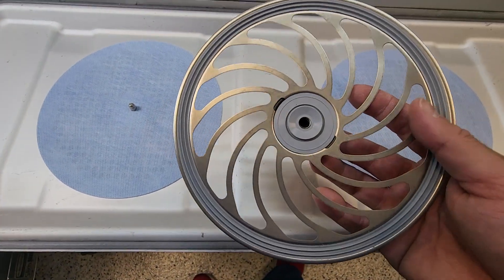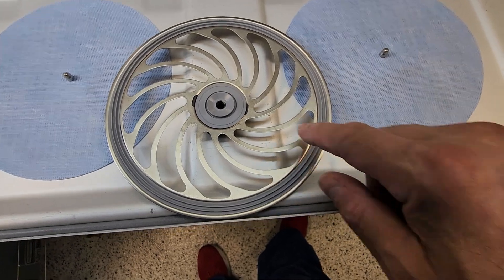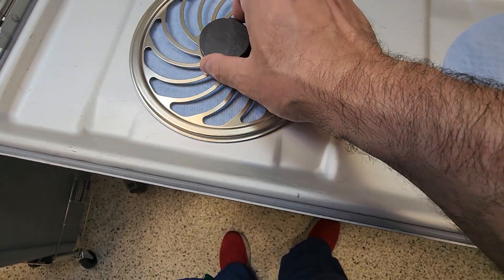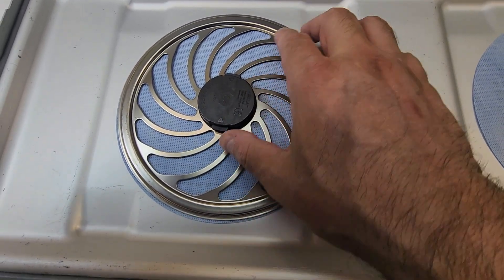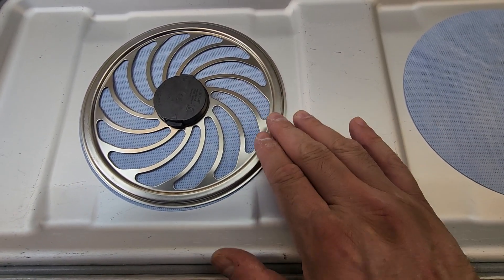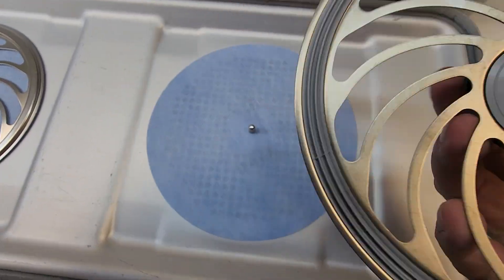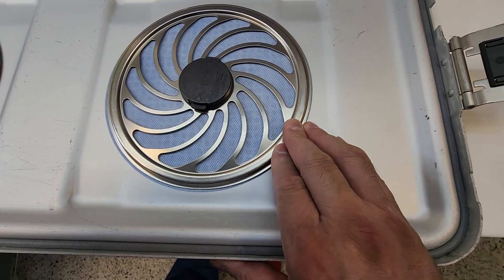Your retention plates are special as well. They have a basket that you must inspect for cleanliness and intactness. Are they clean? Are there any cracks? On the opposite side there are two springs — make sure they work. Next, you want to load your retention plate and listen for the click — that's what you want to hear. It does spin, but it should stay in place. If it spins freely like a DJ plate, it is no good. You have two of them — do the exact same thing: check cleanliness, verify the spring works, listen for the click.